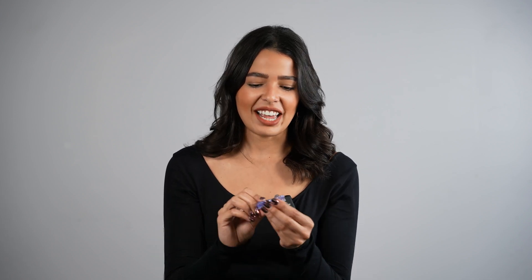It takes about 45 minutes to 3D print a night guard. I designed it myself, and it's been a great tool to keep my teeth in place and make all the treatment my dentist put into it worthwhile. I don't currently wear one, but I probably could use one. I've noticed my jaw getting a little sore sometimes in the morning, so maybe it could be useful for me to get one.